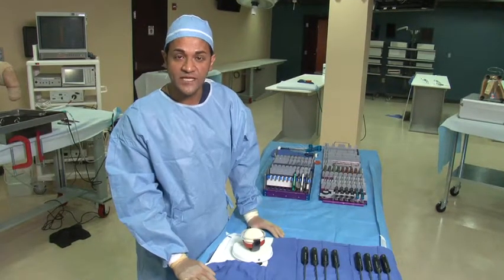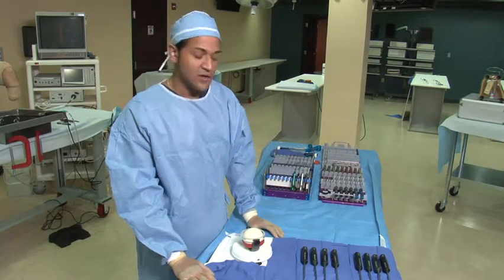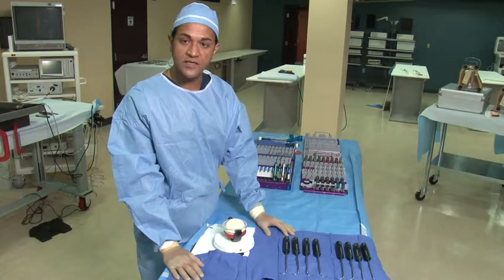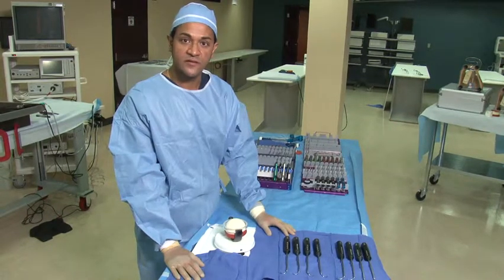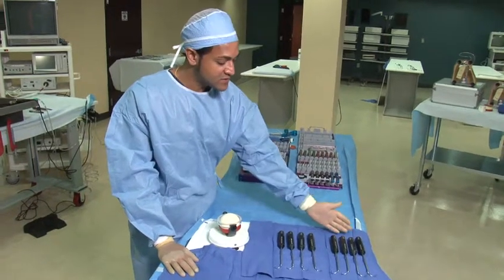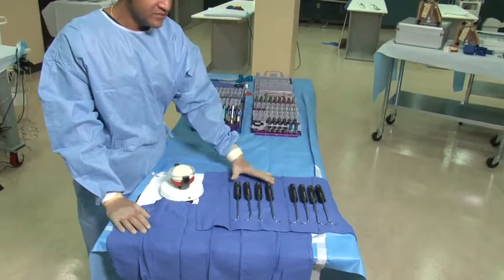I'm Butch Krishnan from the Carroll Clinic in Dallas and we're demonstrating the TAG shoulder instrumentation. One of the beauties of the TAG shoulder instrumentation is the passage of tunnels through bone in a mini open technique with a set of hooks that were designed by Gavriel Moses and these are called the Moses hooks.